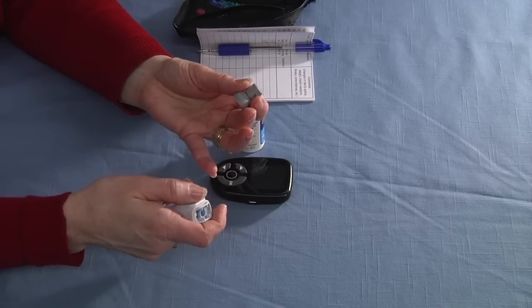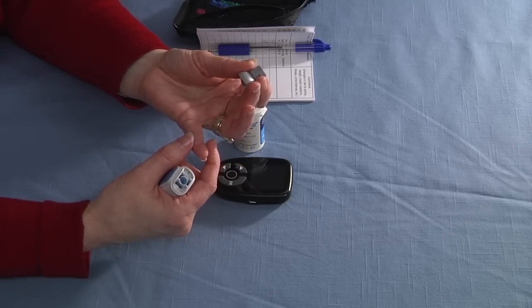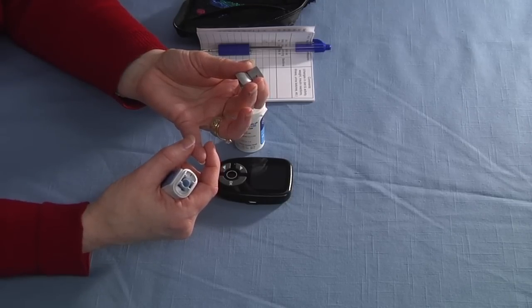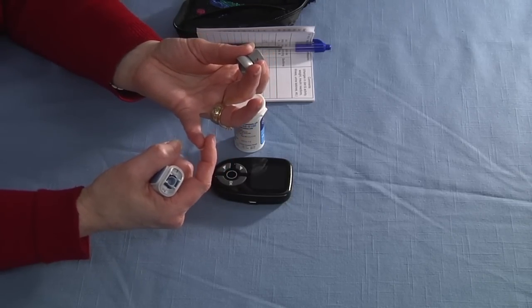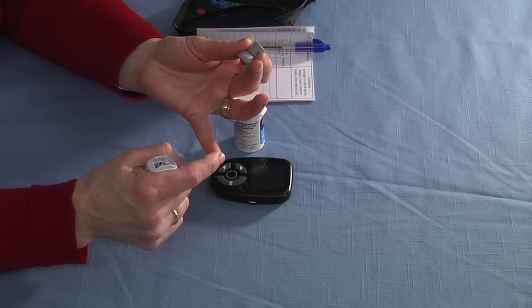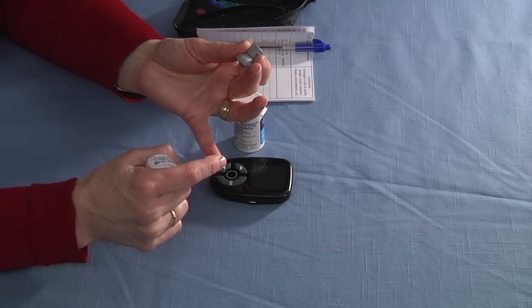The reason I'm using the sides of my fingers is it's the most accurate. When you're using the sides, make sure you use either side, not the pad or the tip. Using the pad or the tip will hurt.